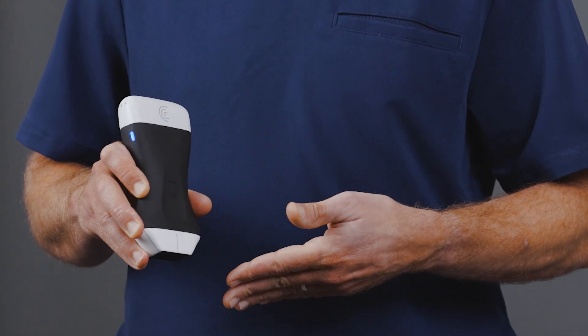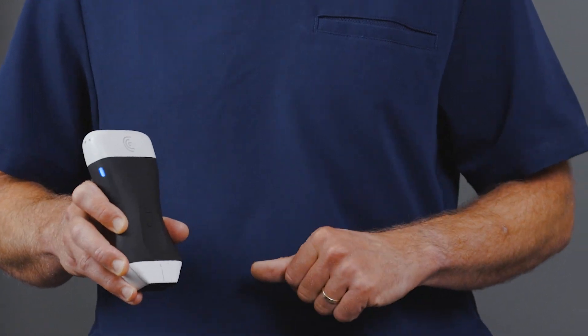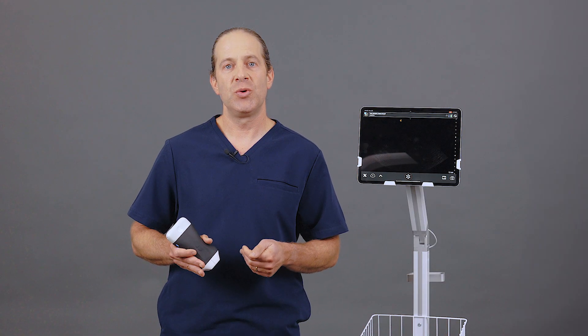This is important for guiding your needle just off-center and keeping it with the Linear Array while you're doing in-plane procedures to keep your needle in view during the entire procedure. All these features combine to enable multipurpose scanning in a single device that allows you to go with a seamless workflow while taking care of a single patient or taking the scanner with you from room to room on your next shift.